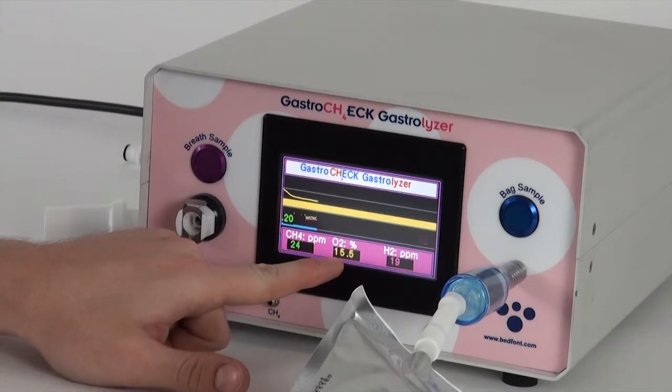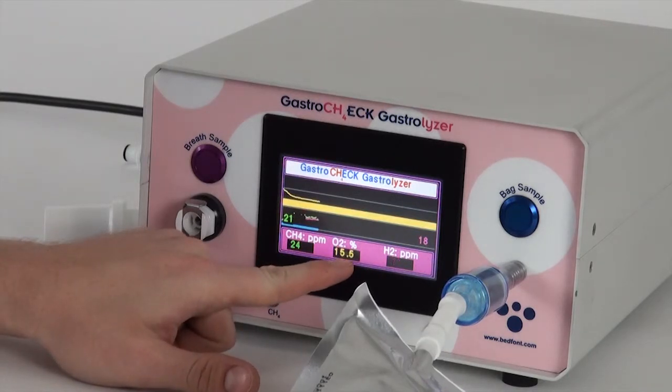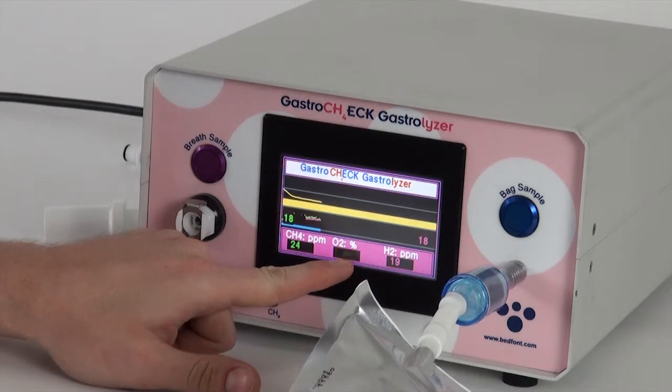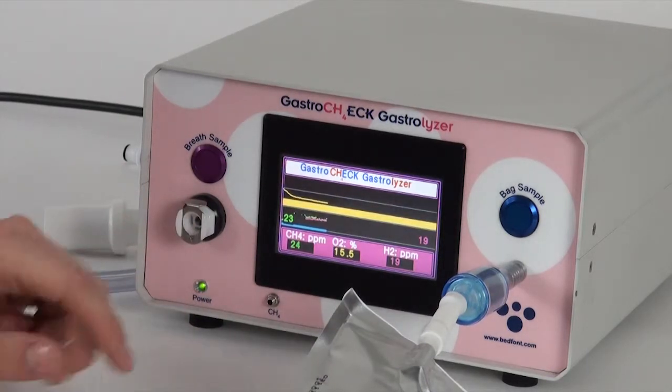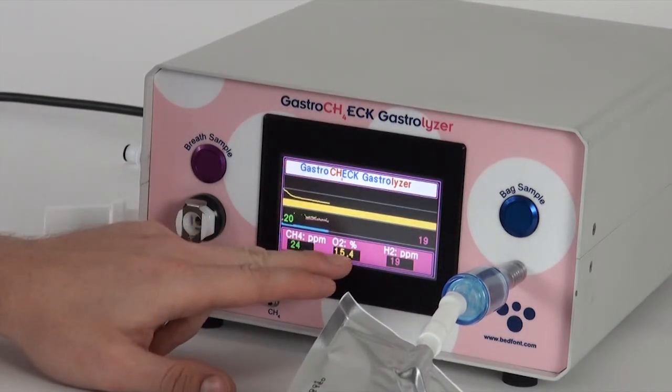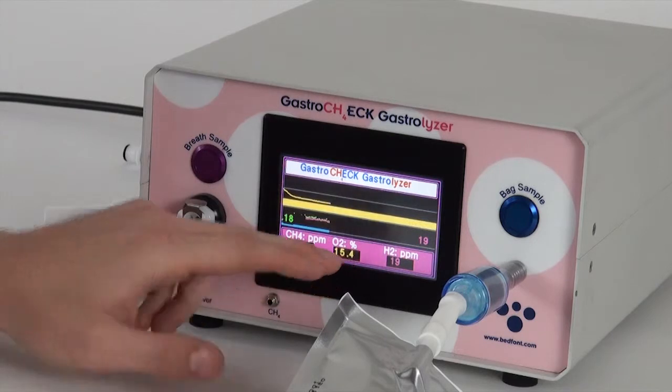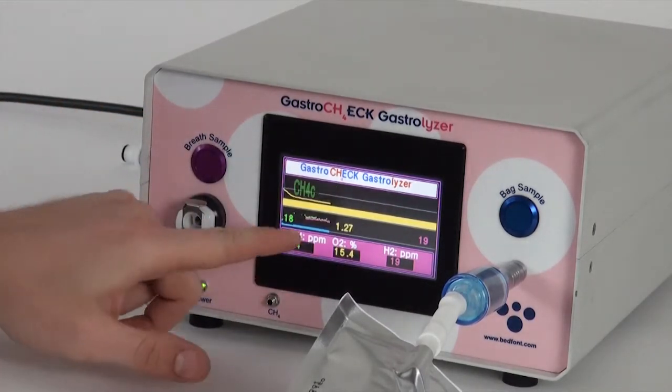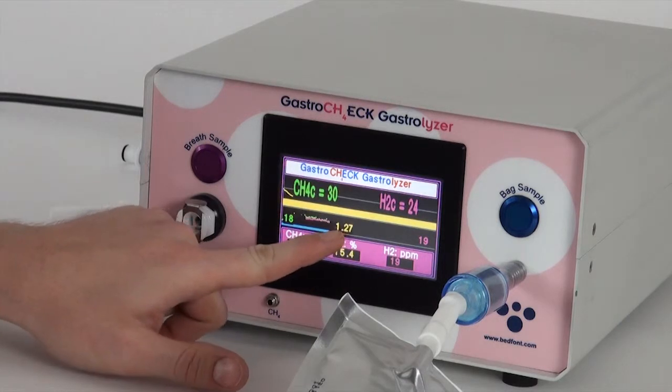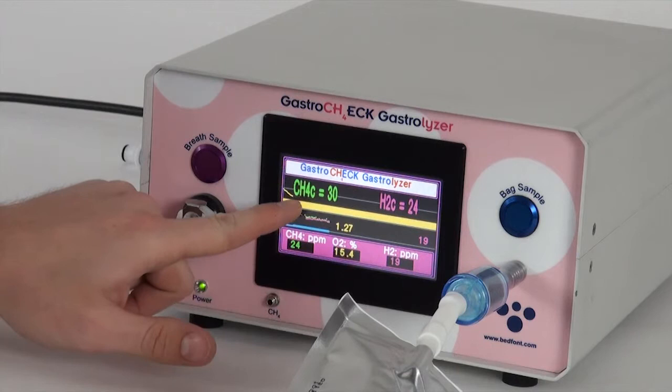And you can see here the bag has about 15.5% of oxygen in it, which is higher than the level in the online breath sample. I've got that down to 13.8. So like I said before, the better levels of oxygen are normally found in the mouthpiece mode.